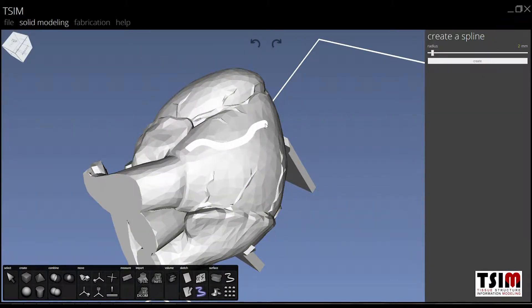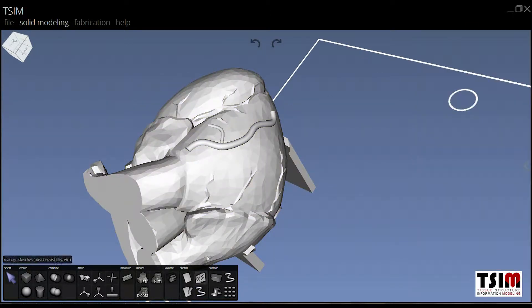we're going to add a new coronary vascular tree design to the surface of the heart in an effort to explore different ways to construct heart tissue.